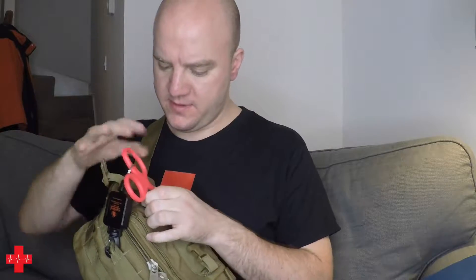This bag you see here is a small Tactical Tailor trauma bag that I use. I've got the scissors attached on top with the scissor leash, and it has a strap so I can use it as a belt pack or shoulder pack. However you want to access the scissors, you've got the buckle on top and then you can just pull on the scissors, cut clothes off, cut equipment.